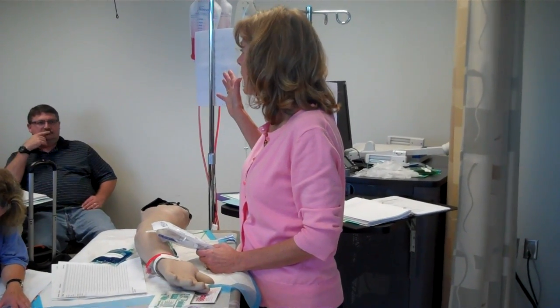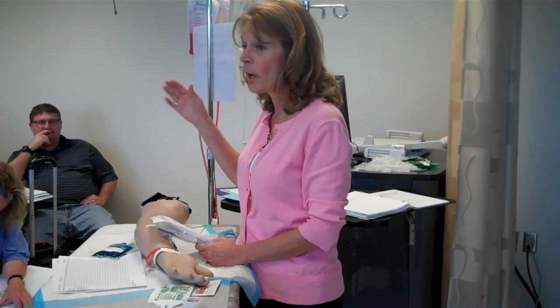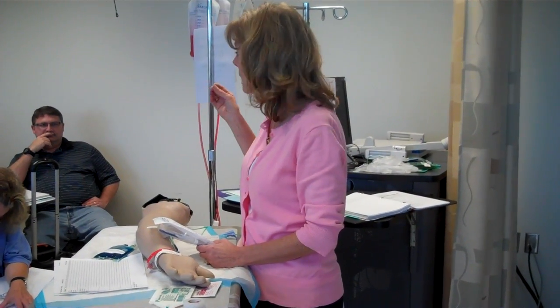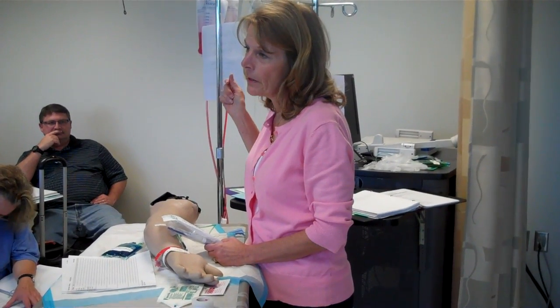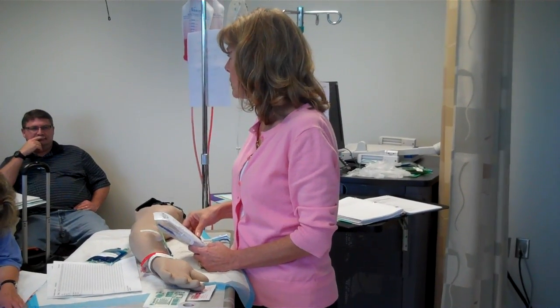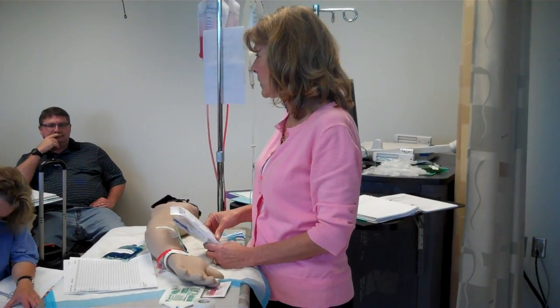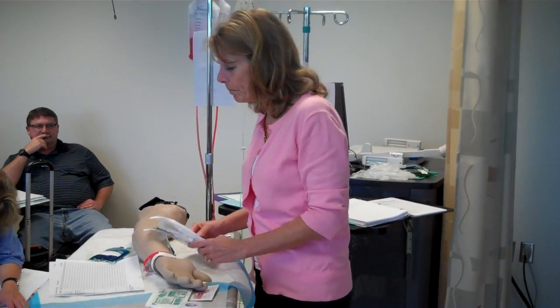Count for 15 seconds. So we're going to take that 50, or whatever you come up with as your drops per minute, and divide it by 4. So if we divide 50 by 4, we're going to get 12 to 13 drops in 15 seconds. So we know that. Okay, so now we've done our calculation.